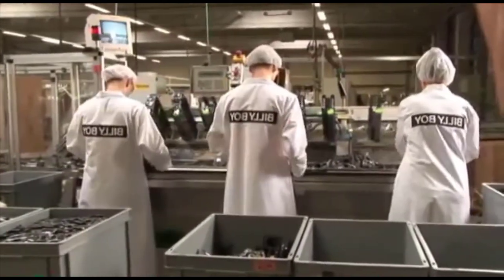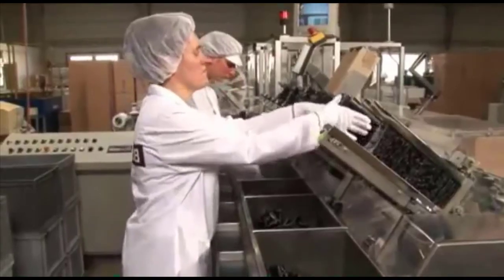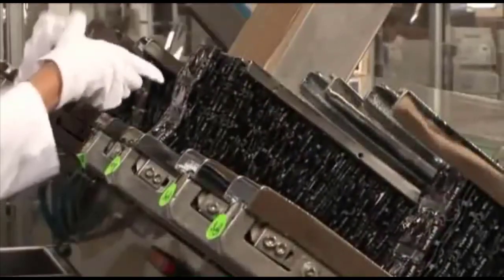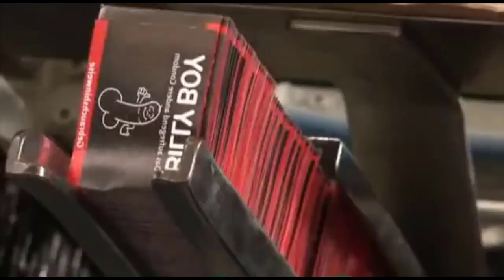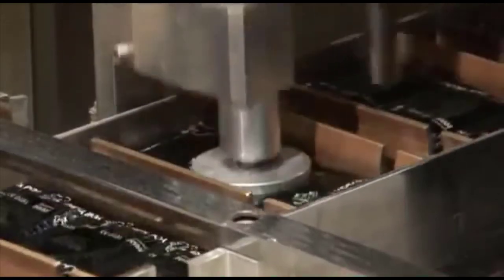MAPA also employs state-of-the-art technology for packaging condoms. Every final package is automatically fitted with a manual outlining the correct use of the condoms, the lot number and the expiration date. The correct weight of its contents is also checked.